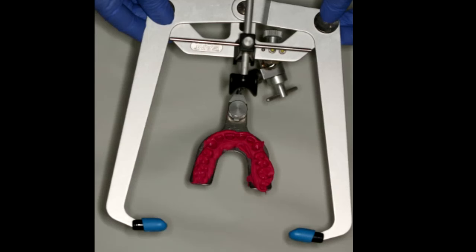Hello Dental Online Trainers, I'm Dr. Dennis Hartlieb and welcome back for another edition of our clinical mini tips. I have my lovely assistant Erica with me today. Today we're going to be talking about face bows, or more particularly about ear bows. I'm going to demonstrate how to take an ear bow, and for those of you who haven't had much experience or haven't picked up your ear bow since dental school, I want to walk you through the step-by-step technique so you can predictably take an ear bow in your practice.